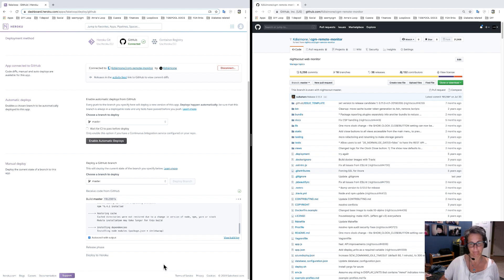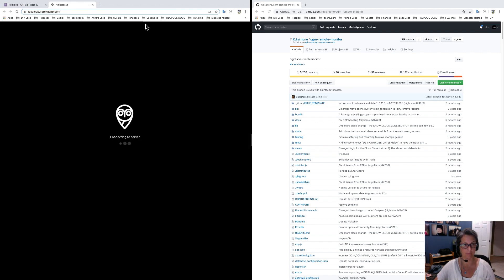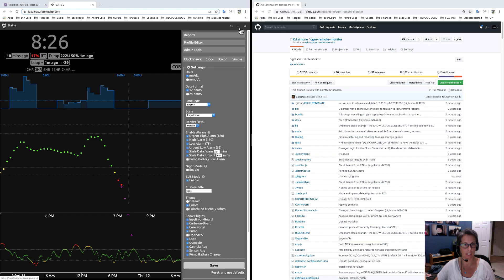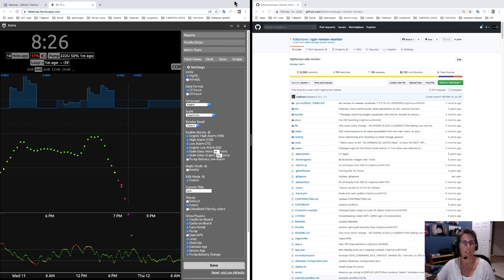We are all good — on the right-hand side it is all green check marks. It has been deployed successfully. We can click View to see it's all there, and double-check our settings. At the bottom you can see the version: version 0.12.3 — that is the newest release. We are all good, it is updated. That's a good check.